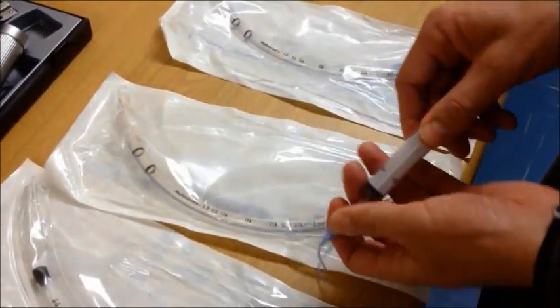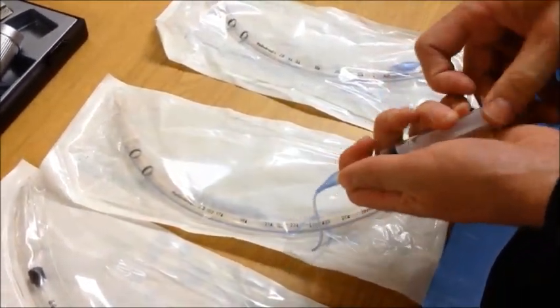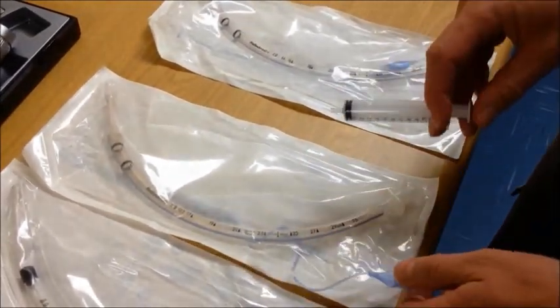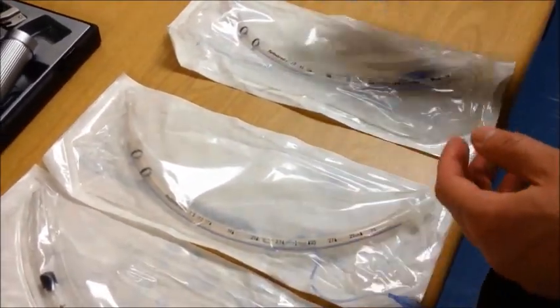At this time deflate the cuff completely and your ET tube is now ready for use without having compromised the sterility of the tube.